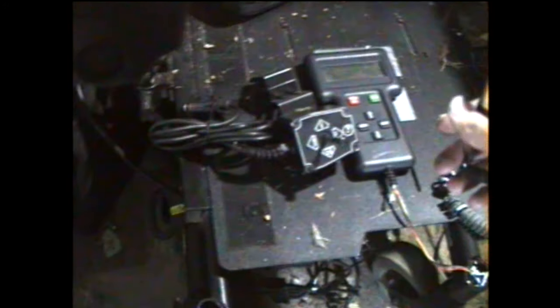What you want to do is go through your menus and select the drive that you want to work on. On this particular one, as you can see, it says Drive 3 and it says Drive Lockout on it.